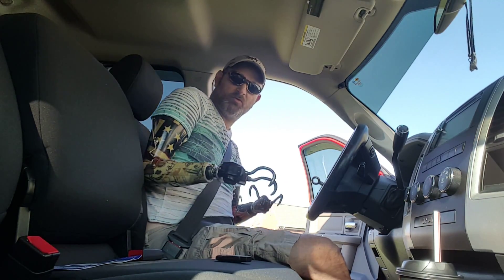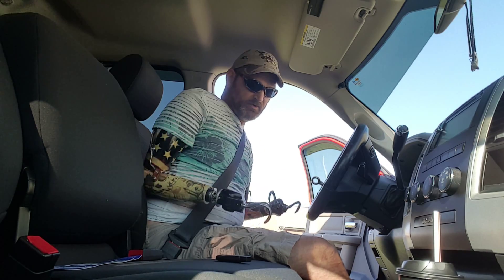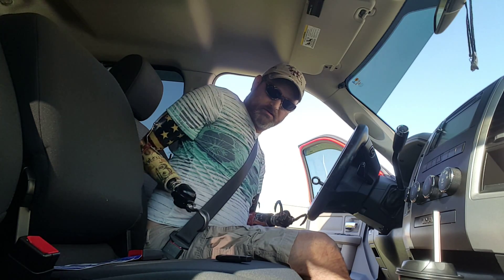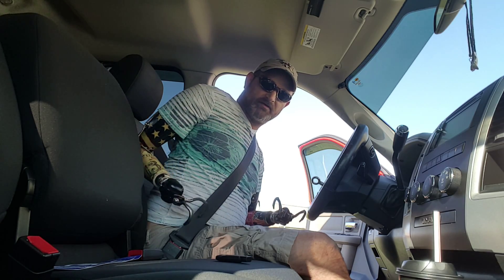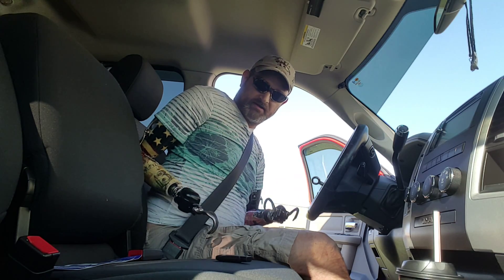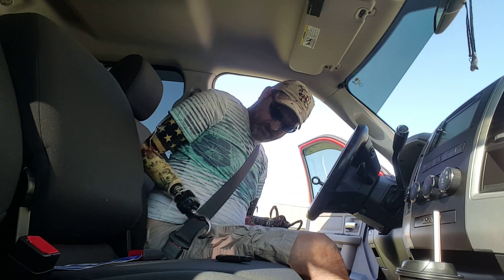All right, I'm going to do this one more time — this is another way of putting your seatbelt on. This arm is kind of acting up today. To move these hooks I've got to flex my muscles, and when I reach back like that, watch — it starts opening on its own just from my muscles flexing. It's not really the arm itself, it's just the muscle flexing as I move my arm back, making the hook open. It's doing things it shouldn't be doing — I usually control that.